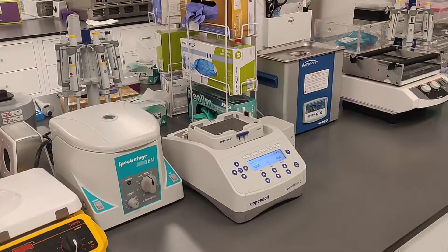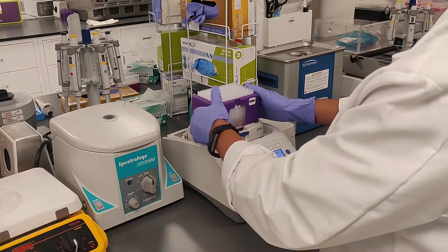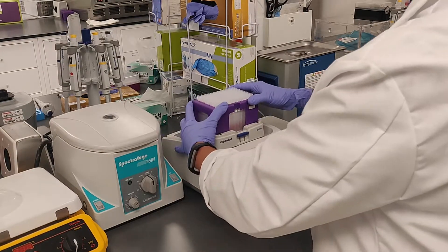Now you can process hundreds or thousands of dried blood specimens at large scale with equipment that fits right on your workbench.